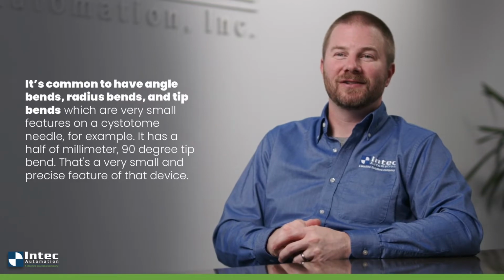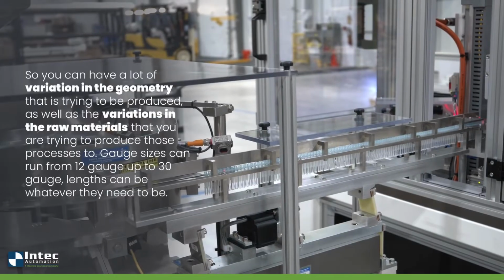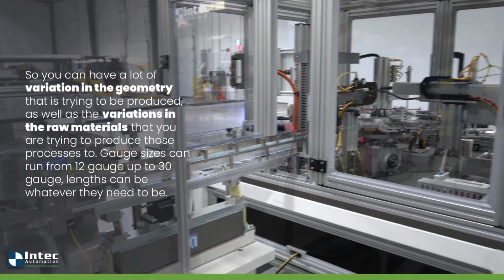On a cystotome needle, for example, it's got a 0.5 millimeter 90-degree tip bend. That's a very small and precise feature of that device. So you can have a lot of variation in the geometry that is trying to be produced, as well as the variations in the raw material that you're trying to produce those processes to. Gauge sizes can run from 12 gauge up to 30 gauge. Lengths can be whatever they need to be.